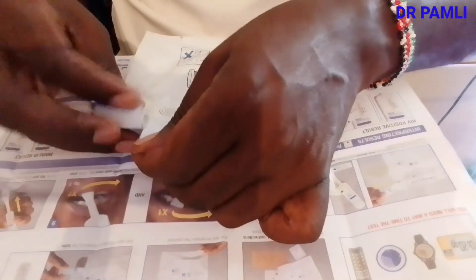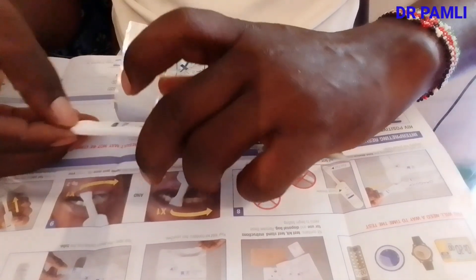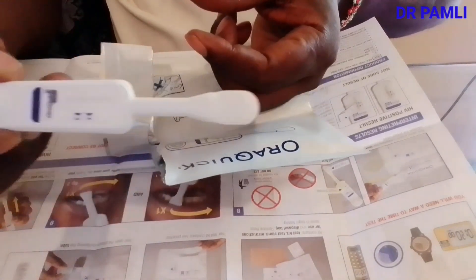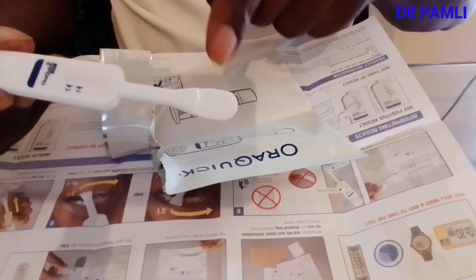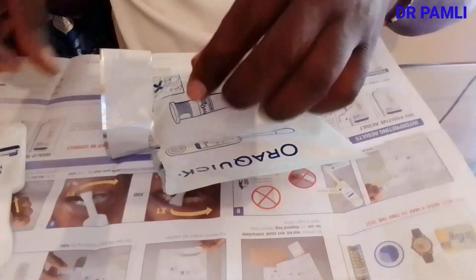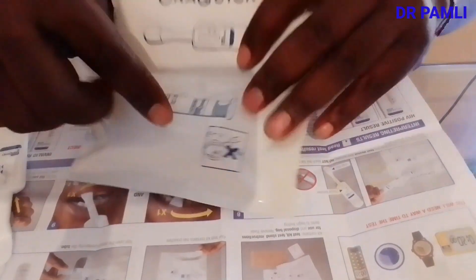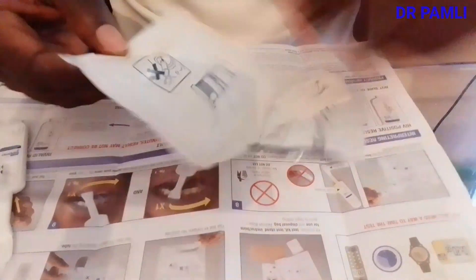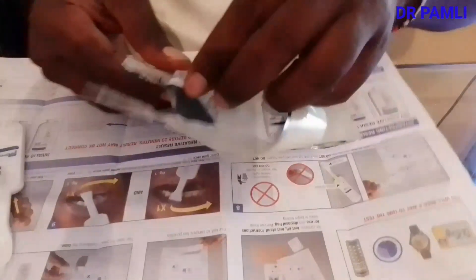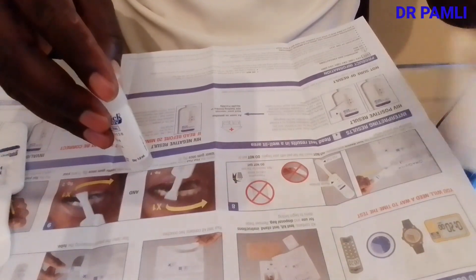In the pouch that contains the tube, open it very slowly with your hand — it is very soft. Be careful not to interfere with anything inside. The test device is very important: you may touch it by the end, but do not touch the pad, as this might interfere with the result. The tube that contains the liquid — make sure you open it carefully and remove it. It has a cup on top.